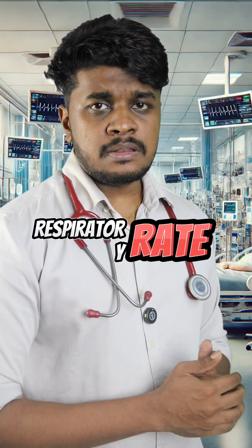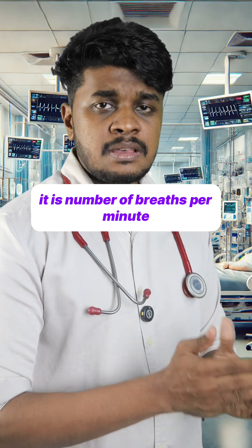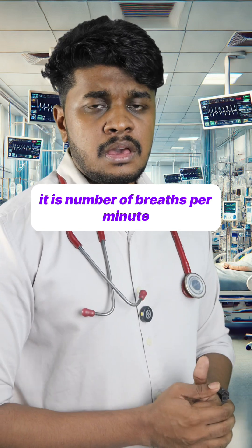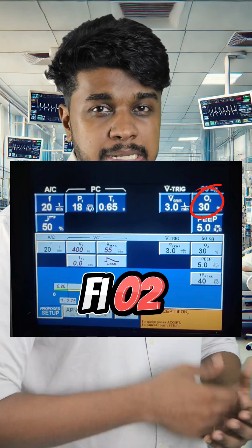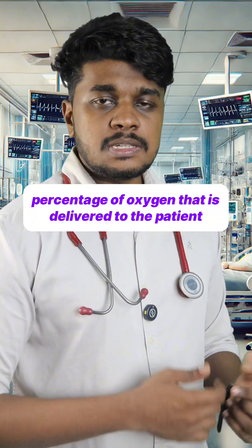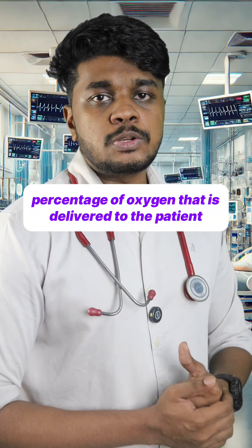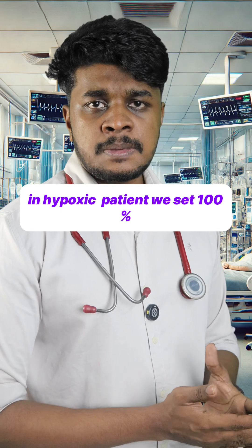Next, we have to set the respiratory rate. It is the number of breaths per minute. Usually we have to set it between 12 to 20. Next one is FiO2 — it indicates the percentage of oxygen that is delivered to the patient. In hypoxic patients, we set 100% FiO2.